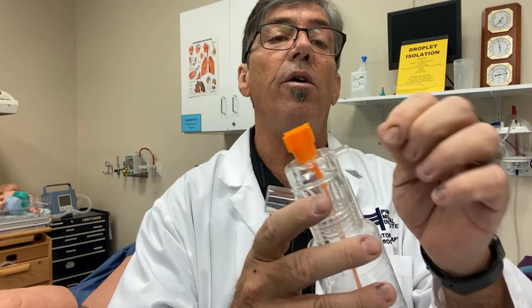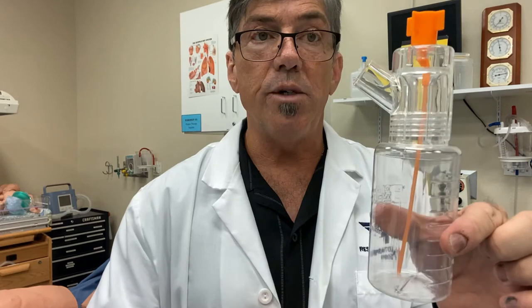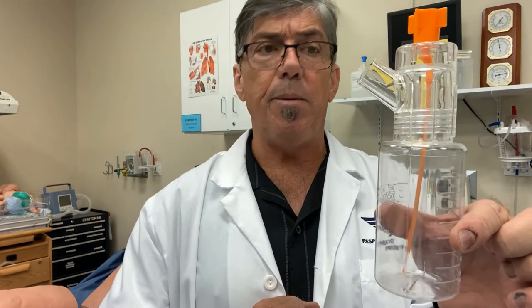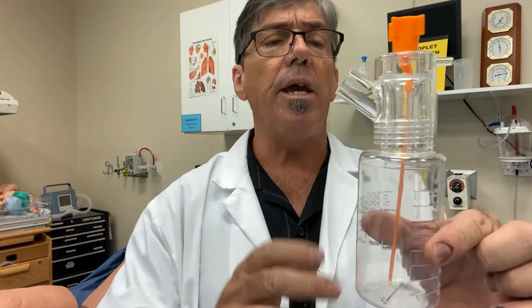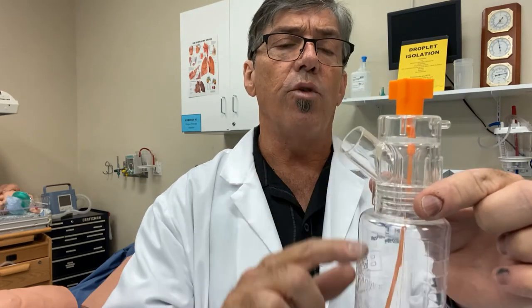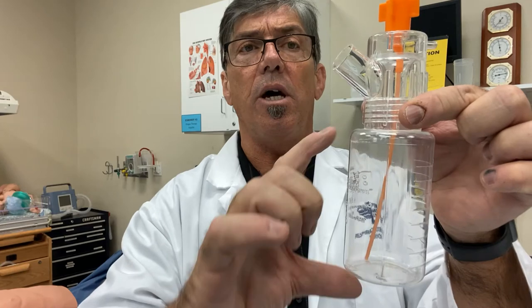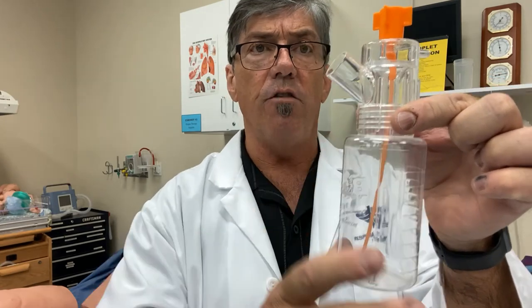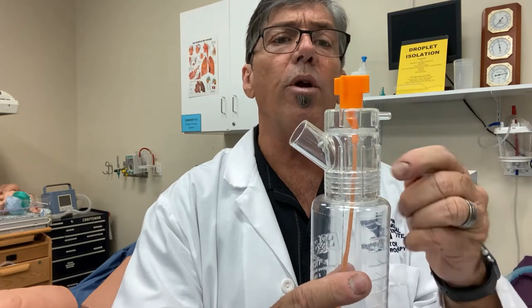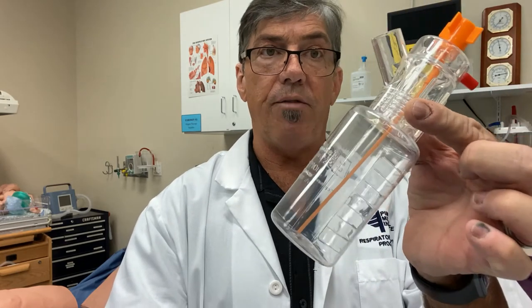There's an additional port here. If pharmacy could mix a bag of medication that we can dispense over a period of time, you can do that with a bag hanging and IV tubing inserted into this port and drip the medication, keeping the container full. That can be on just a TKO where you adjust the hand port on the IV to infuse, or even an IV pump can be utilized if that's required.